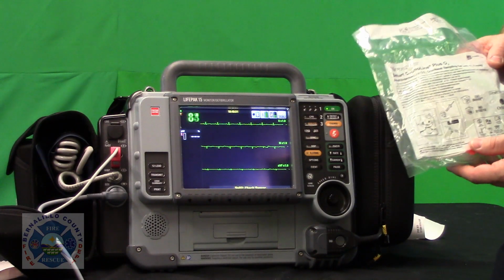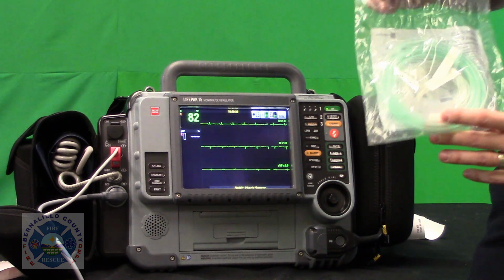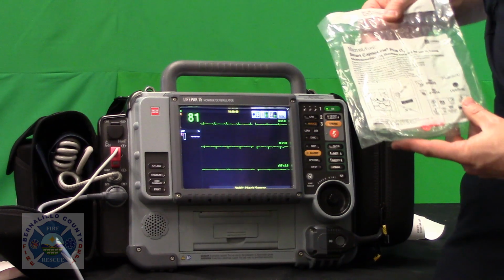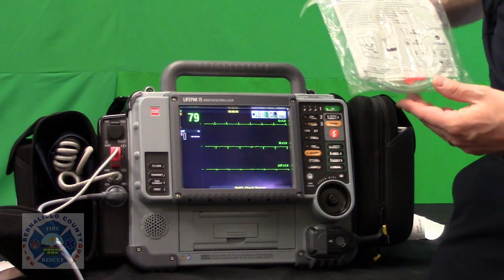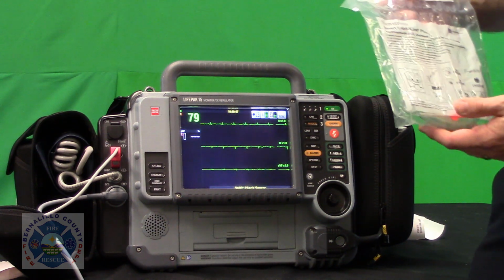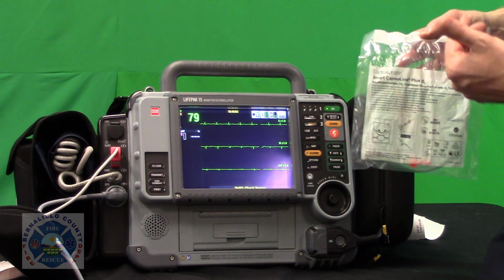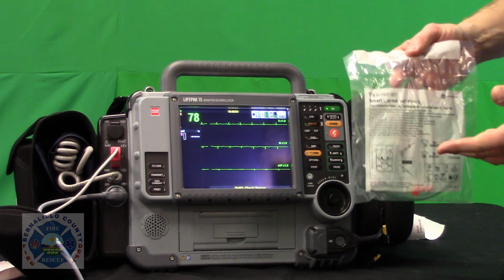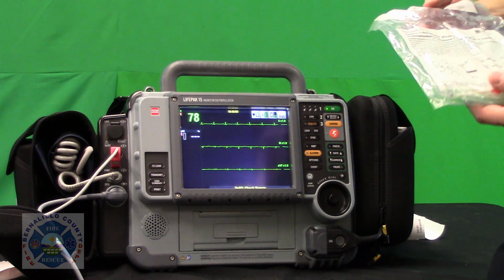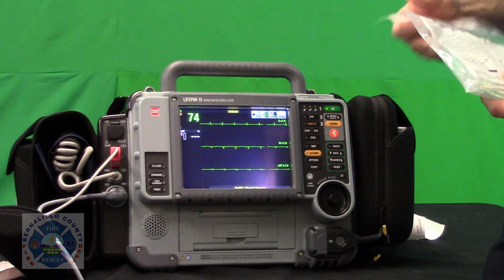Okay, so end-tidal CO2 monitoring using the oral-nasal sampling cannula provided for the LIFEPAK 15. This is going to be rolled out on any patient in which you're concerned about their respiratory status. So if they're complaining of shortness of breath, you're going to be administering medications to treat breathing, and you want to have an objective picture as to how well or how not well your medication interventions are going. This tool is invaluable to you to figure out what your patient's respiratory status is.